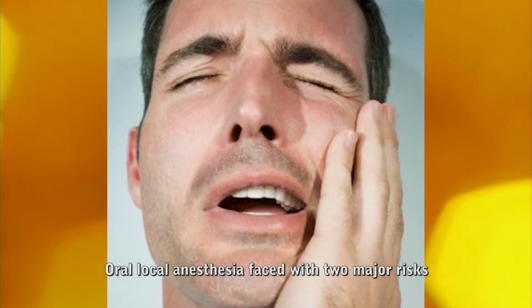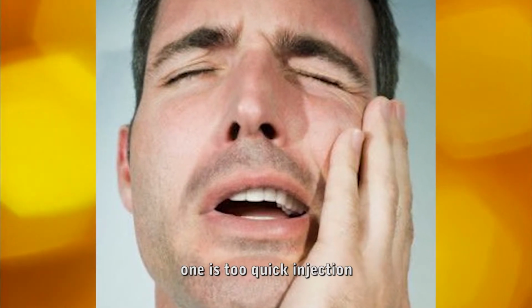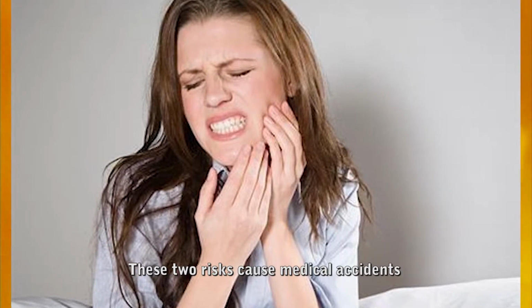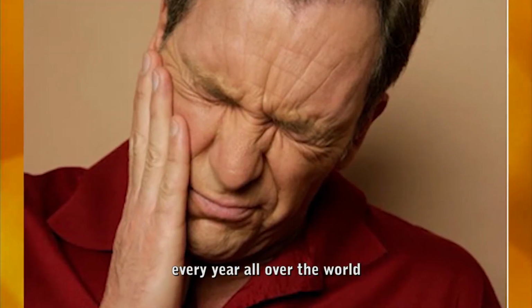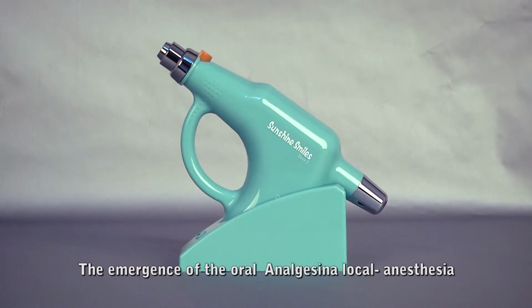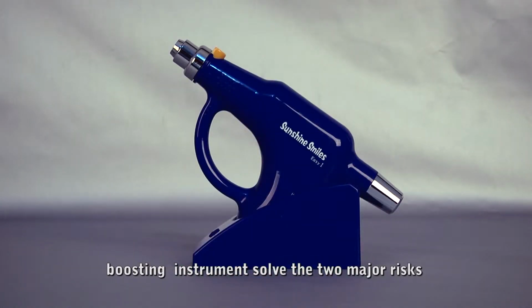Oral local anesthesia faces two major risks. One is too quick an injection, the other is overdose. These two risks cause medical accidents every year all over the world. The emergence of the oral analgesia local anesthesia boosting instrument solved the two major risks.